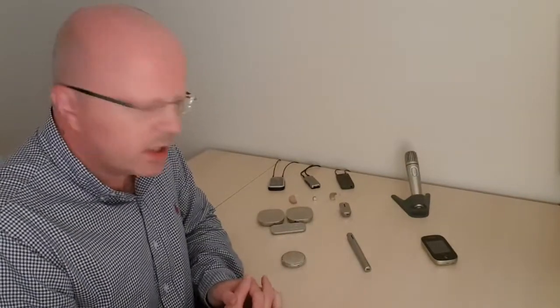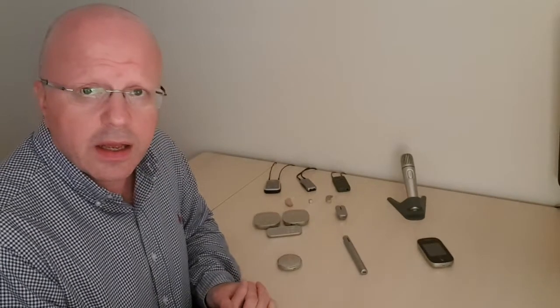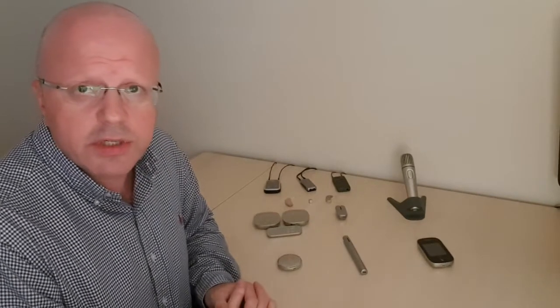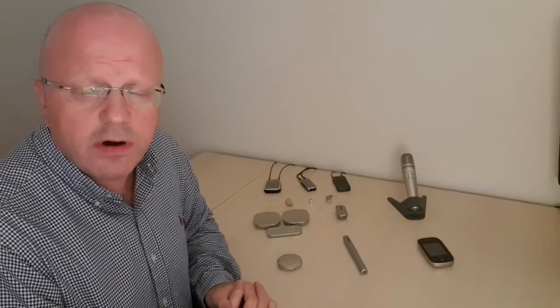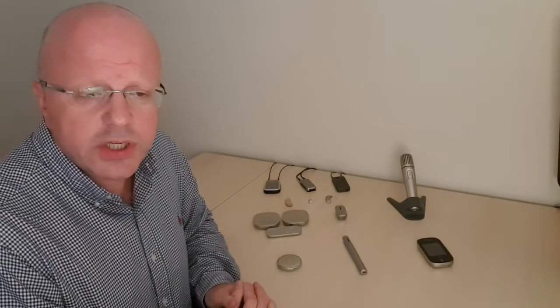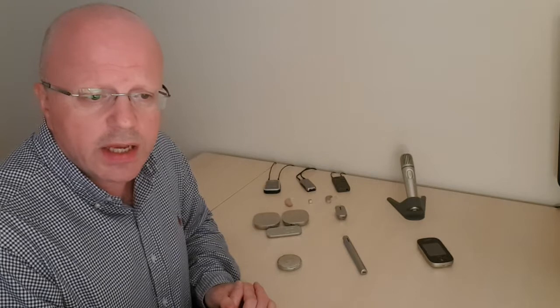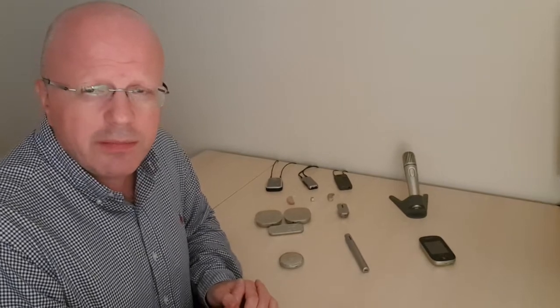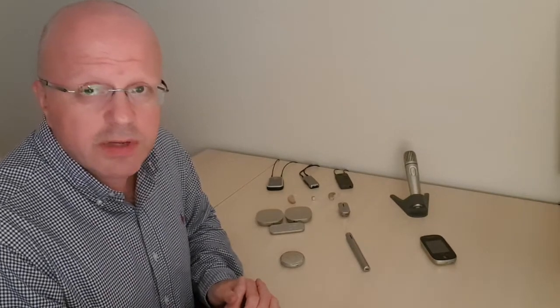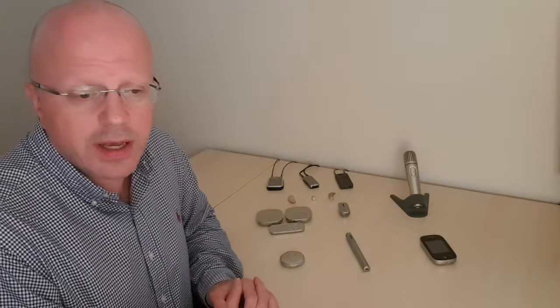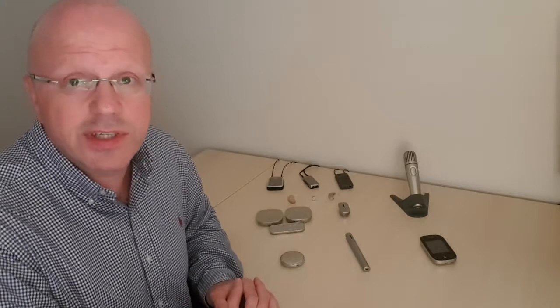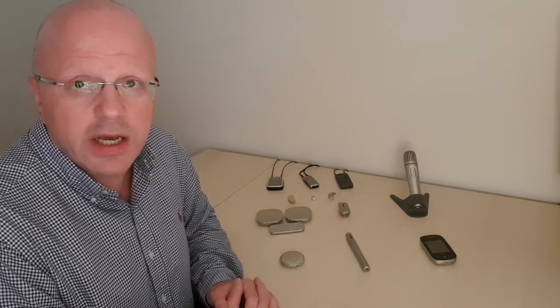Okay, so the Roger Select and Roger Pen are good, I would say, for situations where you've got a small group of people, maybe up to seven or eight around the table or in a small group. And then when you've got a bigger group, perhaps around the conference table in a workplace situation, you might use a different type of transmitter that works with the primary transmitters.